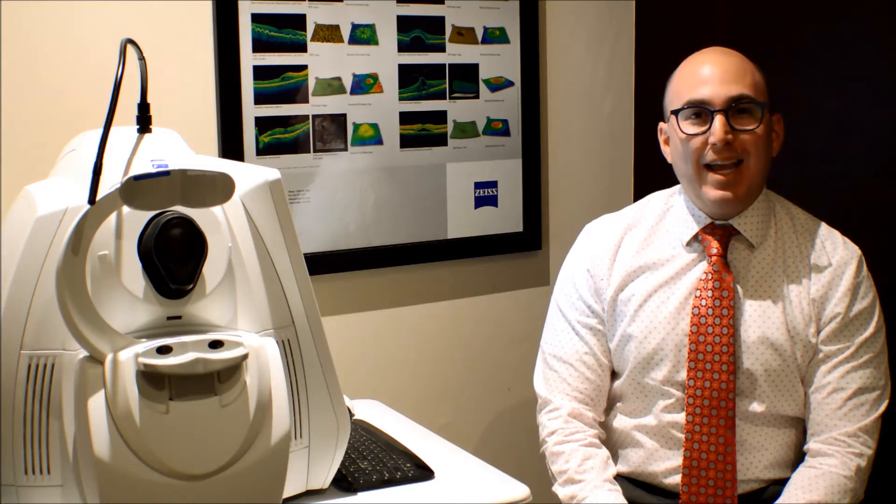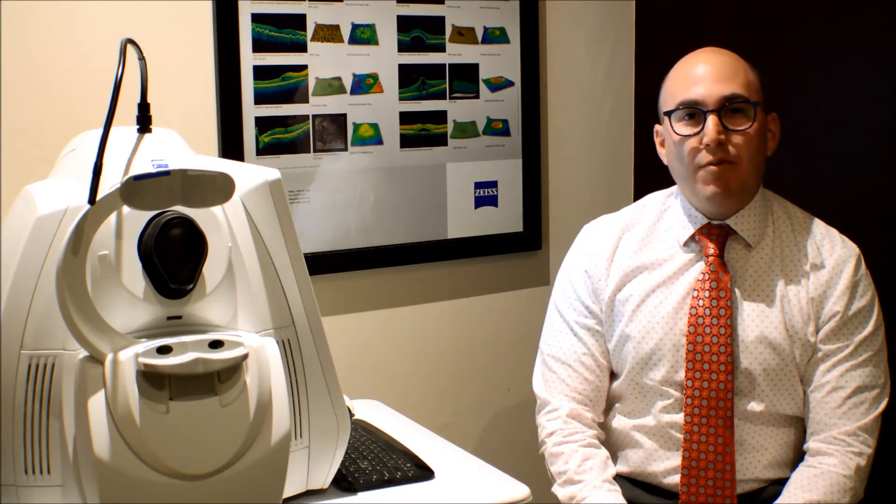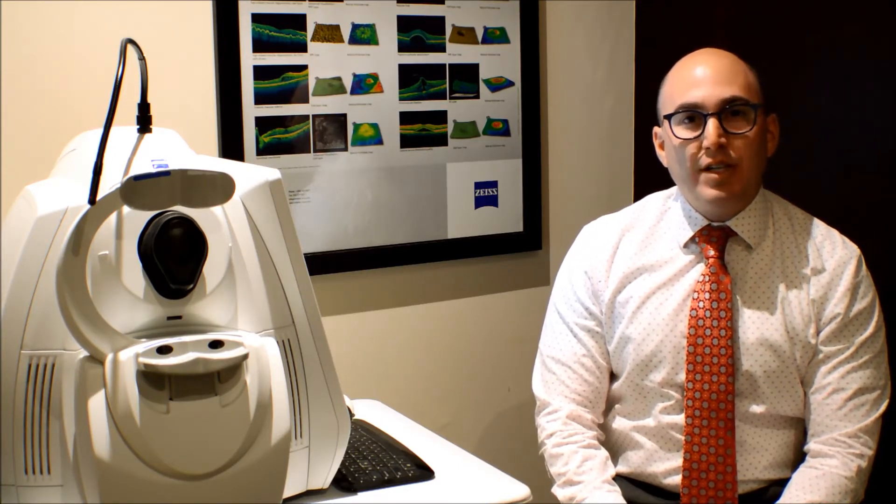OCT technology allows me to see things that my human eye cannot see. It lets me see below the surface. I recommend everyone having an OCT done once a year at minimum. Let's go into more detail about what an OCT is and some of the common conditions we often diagnose with the OCT.